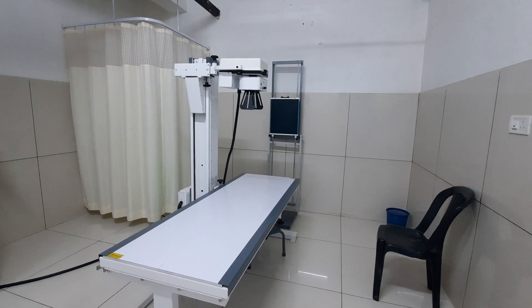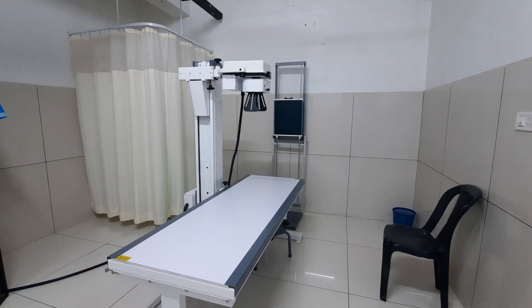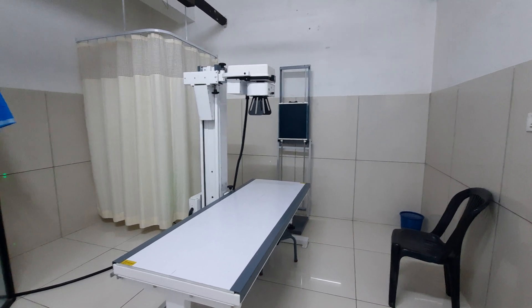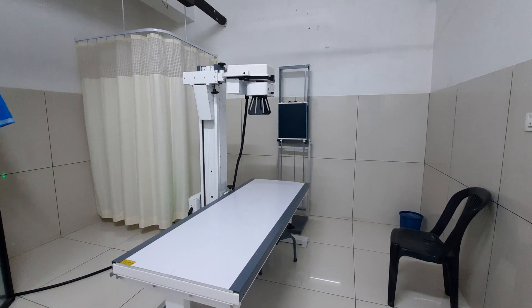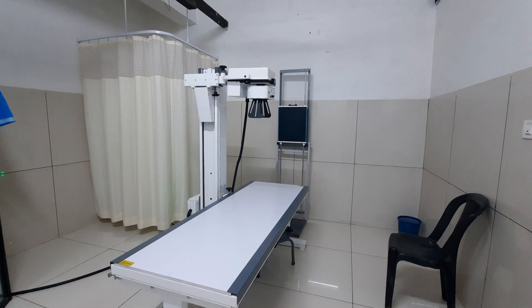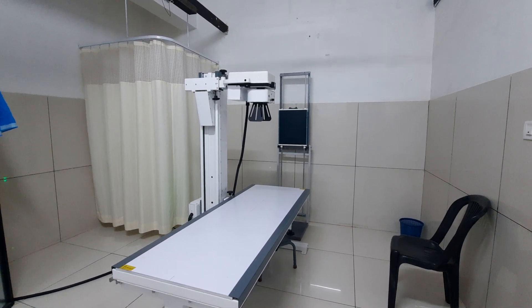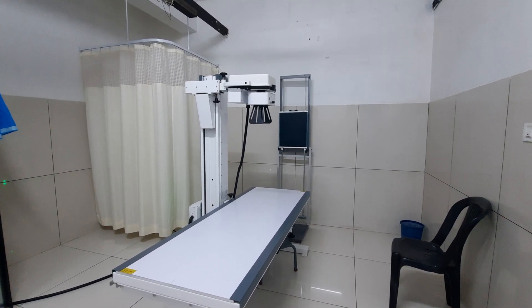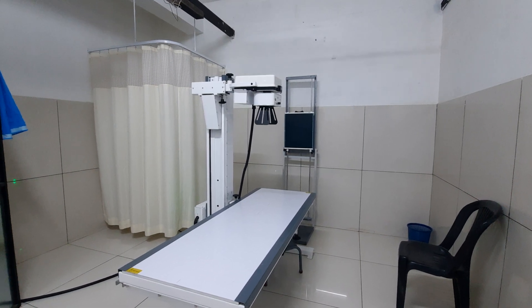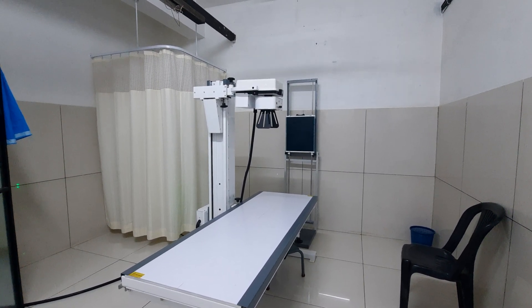In the CR system we use cassettes loaded with intensifying screens. These cassettes may be exposed and then read using a CR reader. After the cassette is read using a CR reader, we get the image on the computer monitor.